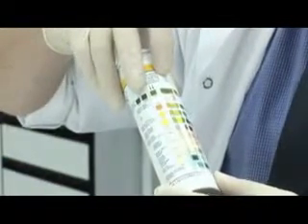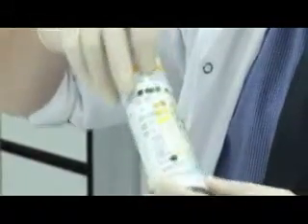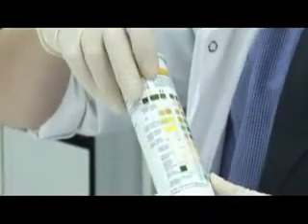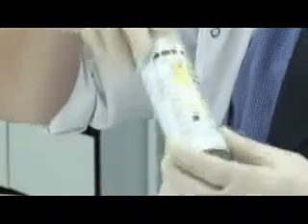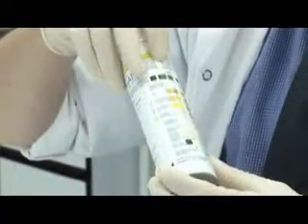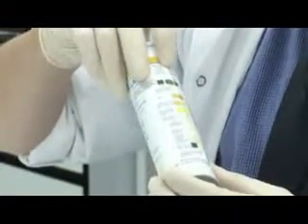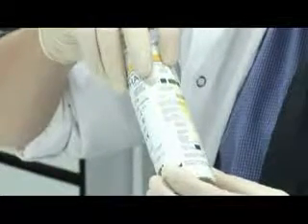So this one is the test for blood. Normally if it's negative, I should get a yellow colour, and instead I'm getting quite a strong dark blue. And if I align it with the next colour, this one here, that means there is a strong amount of blood in this sample. There's lots of blood, a significant amount of blood. So that's quite a strong reaction.